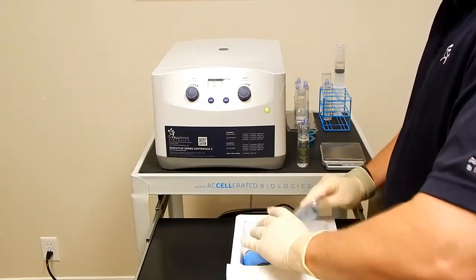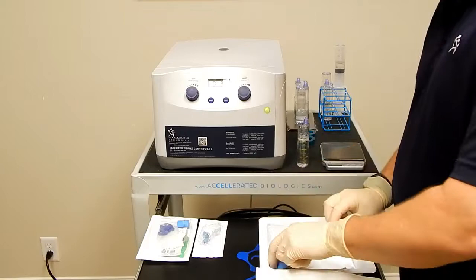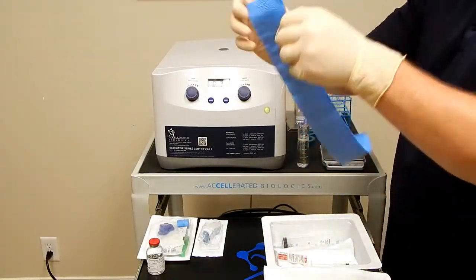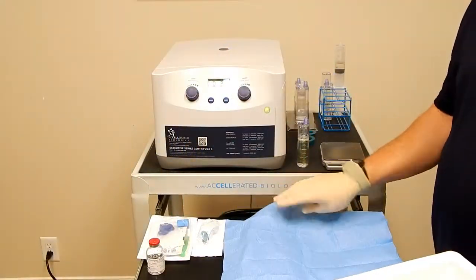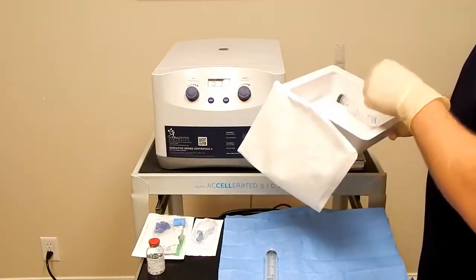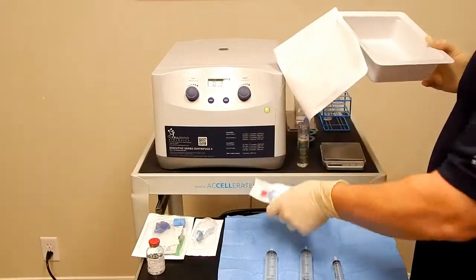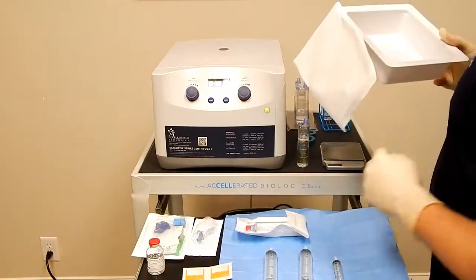Including your blood draw accessory, a stopcock for final measurements, sodium citrate anticoagulant, one sterile blue drape, a series of syringes — that's 30 ml, another 30 ml, your final 12 ml syringe, your sterile capped counterbalance, alcohol swabs, and identification sticker.